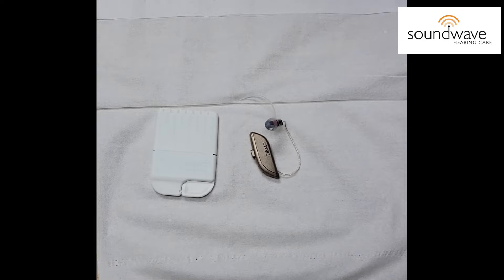If your hearing aid is fully charged or you have a new battery in it and you feel like the hearing aid is either incredibly weak or soft or not working at all, this should always be your first line of defense.